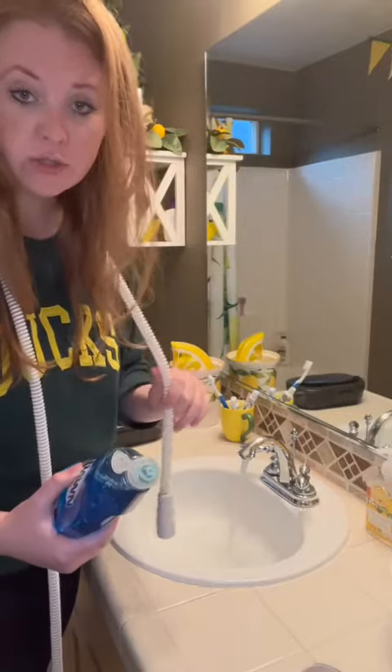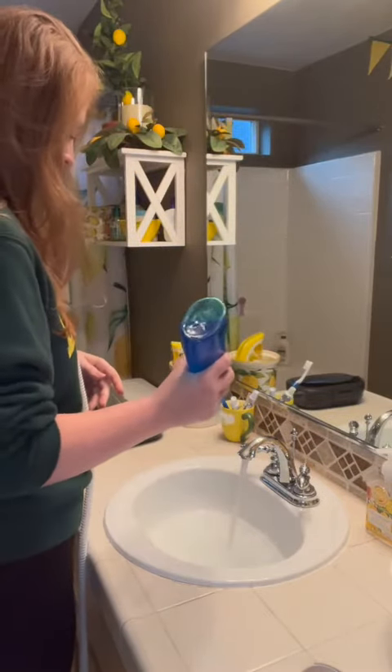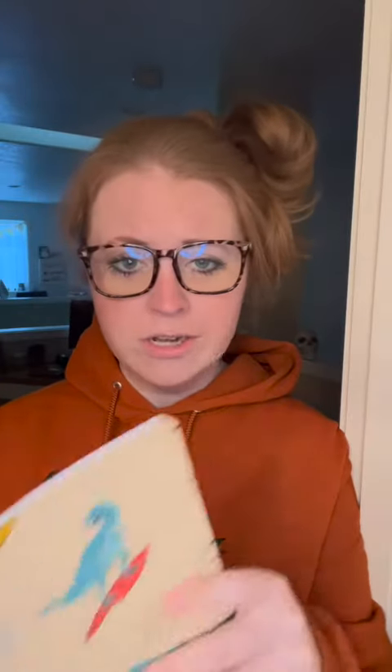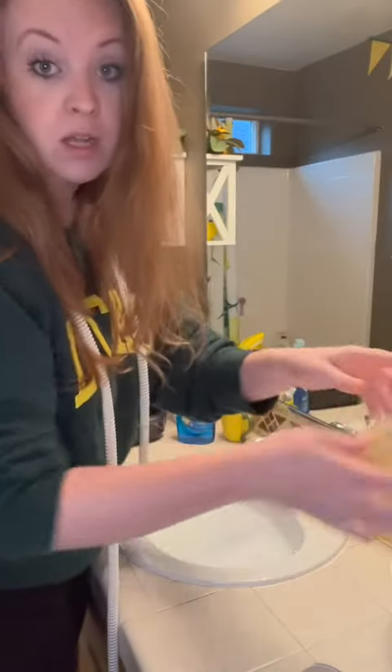Can I take some notes if that's okay? Sure, I can show you. So I'm just putting some warm water here in the sink. I'm going to take some regular dish soap, put a little bit in there, get some bubbly going, if you know what I mean. Clean it off with the same kind of soap they wash oil off the little ducks of the ocean. Not too hot, not too cold, just the way I like it.